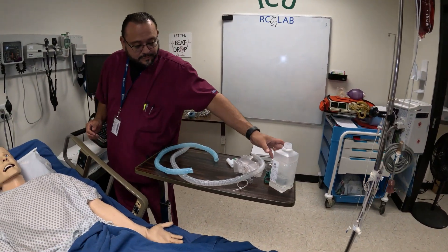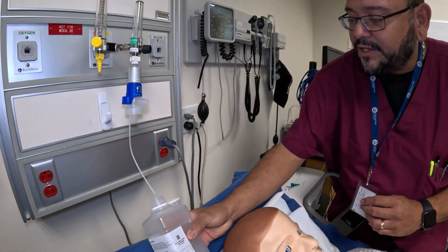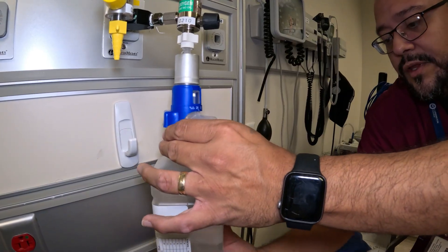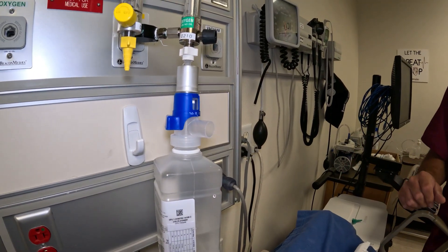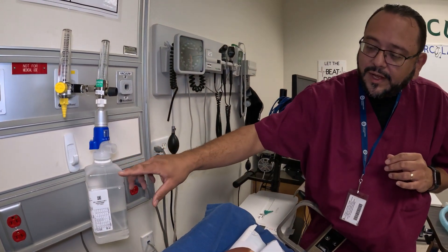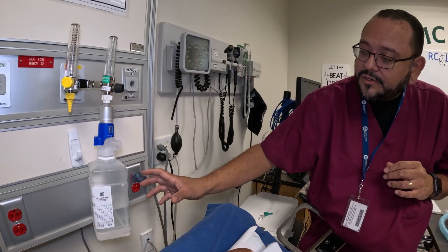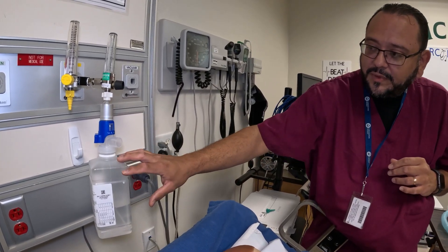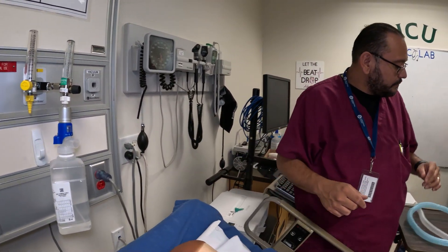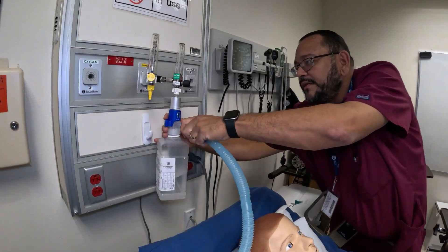The humidity is more effective for the patient when it's heated. Now take your bottle — we're pretending this is a full bottle — and twist it in here. Be mindful of how much water you have; always start with a full bottle and keep an extra in the room. Once you see the bottle getting down to about one quarter or less, change it out. When you change it, it's good practice to change the whole thing — these usually come in kits, so just change everything out at once.